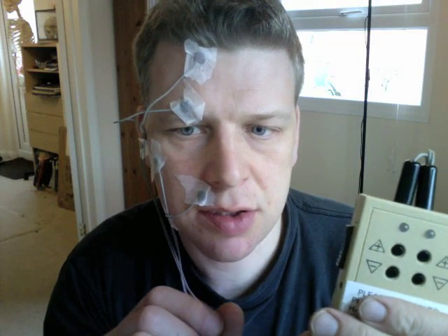They're positioned - there are a number of different places, six locations that they talk about for different places on the face. And then the next thing is to use the actual unit, so simple on/off switch - switch it on, and you can see the green lights go on and off.